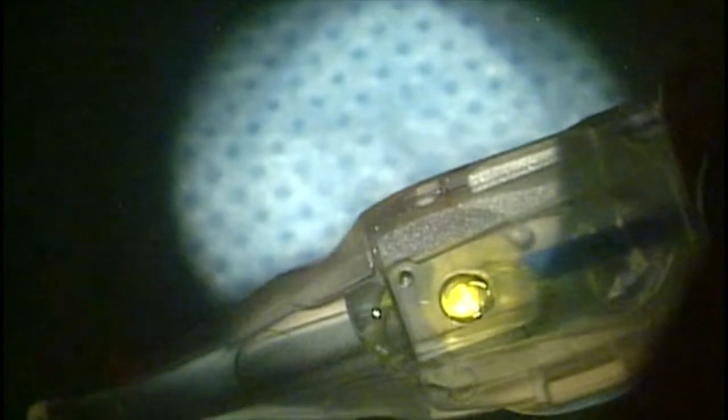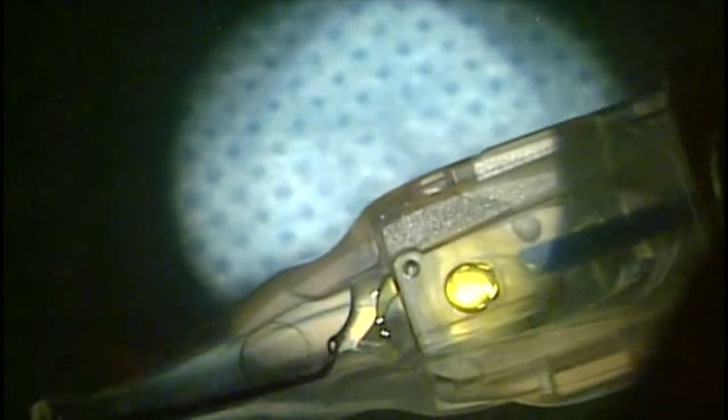The key is to identify the instances where that leading haptic is going to want to go straight and take corrective action as early as possible so that the haptic doesn't become straight.